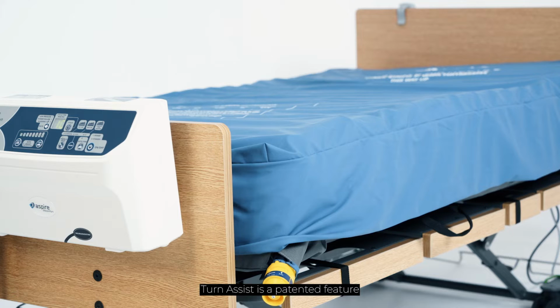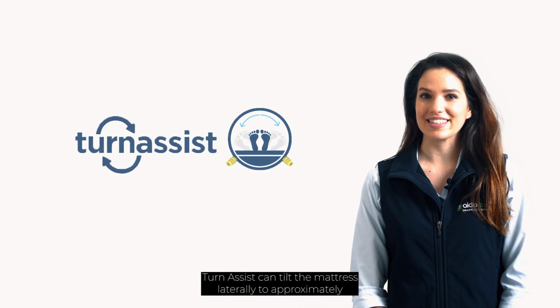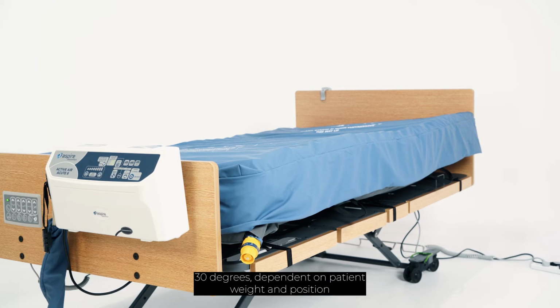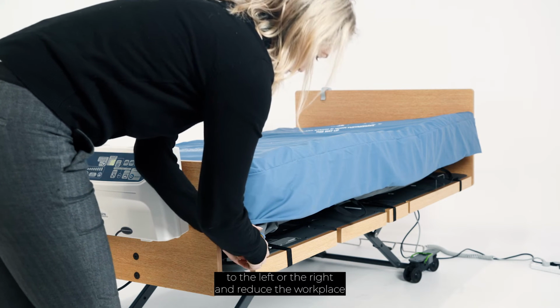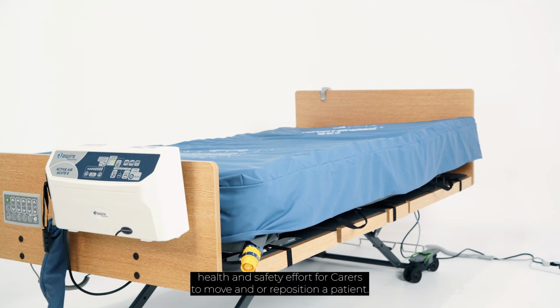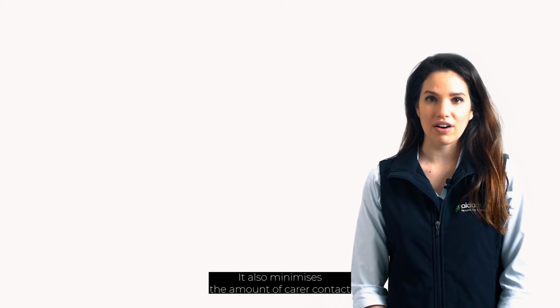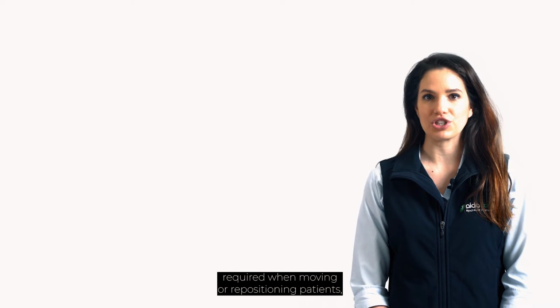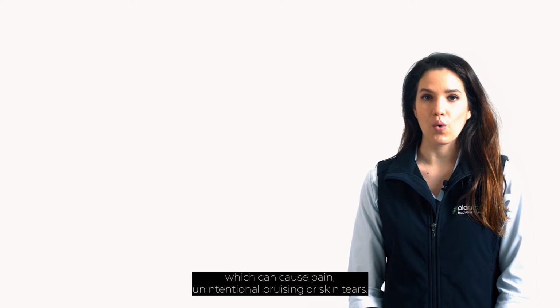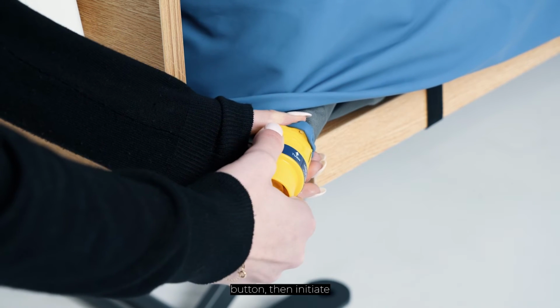Turnassist is a patented feature only available in the Active Air Acute 8 system. Turnassist can tilt the mattress laterally to approximately 30 degrees, dependent on patient weight and position, to the left or the right, and reduce the workplace health and safety effort for carers to move and/or reposition a patient. It also minimises the amount of carer contact required when moving or repositioning patients, which can cause pain, unintentional bruising, or skin tears. To do this, firstly engage the auto firm button.